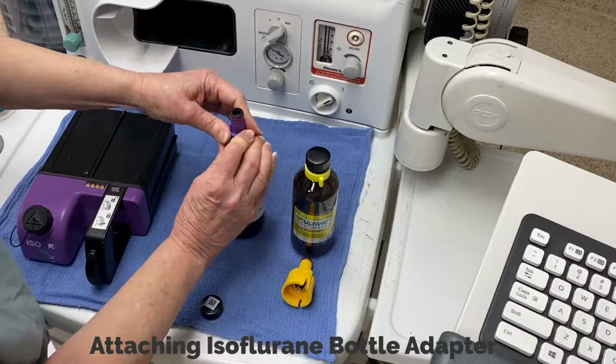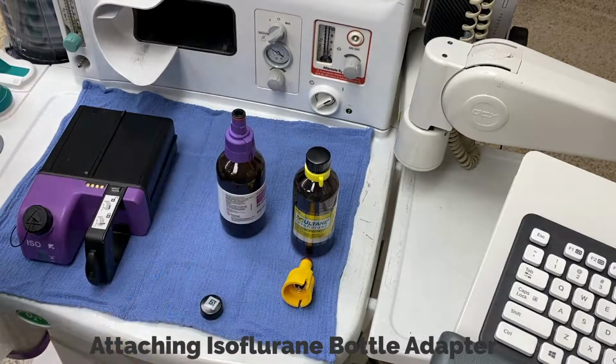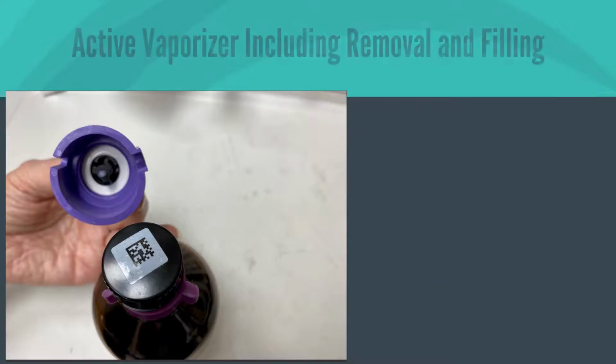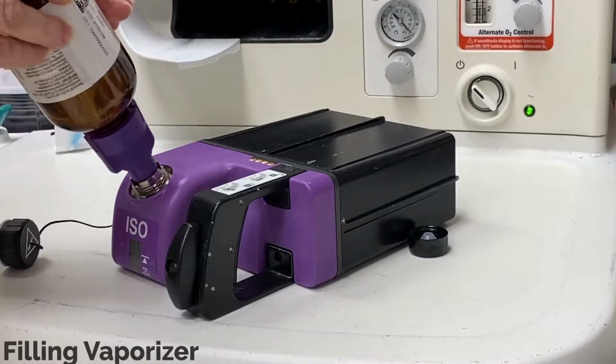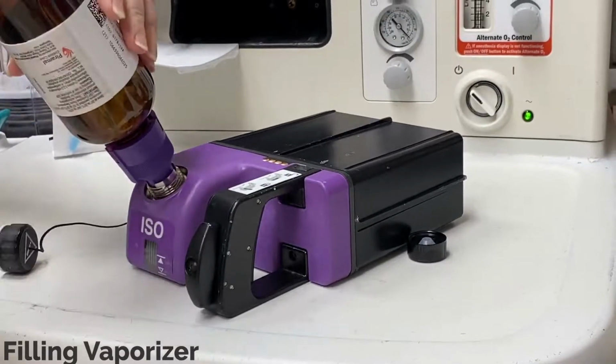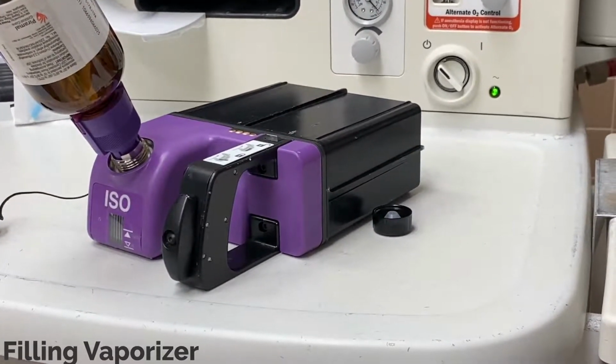To fill the cassette, place it on a flat horizontal surface. Attach the Easy Fill adapter to the bottle of agent. Note that the bottle adapter is color-coded with size-specific slots that align with the color of the agent's bottle. Remove the filling port from the cassette. Invert the bottle, aligning the adapter grooves with the cassette filling port, and push the bottle down to fill.